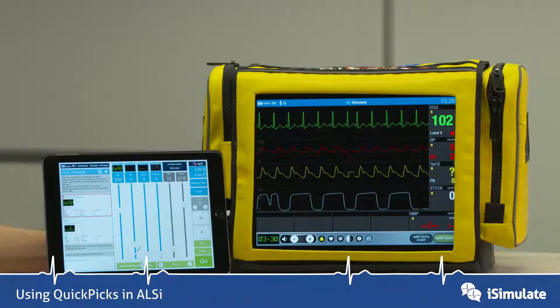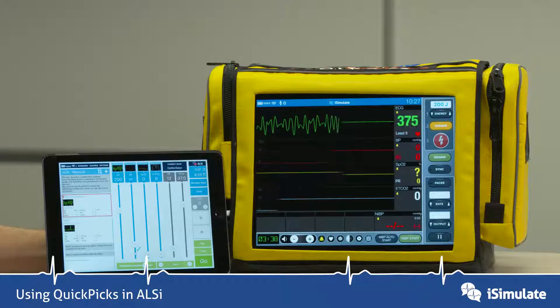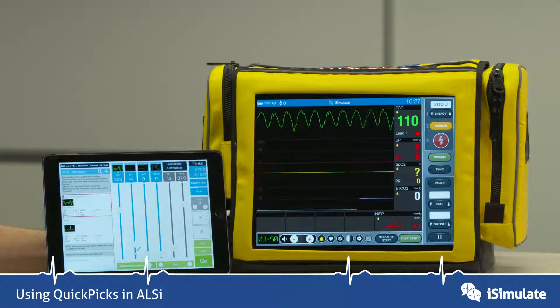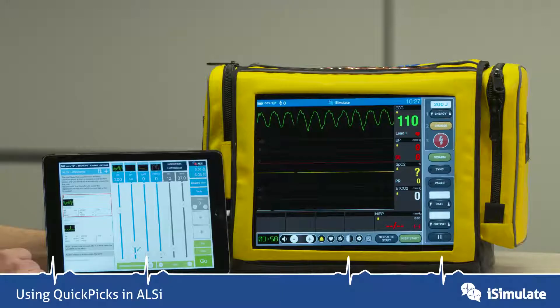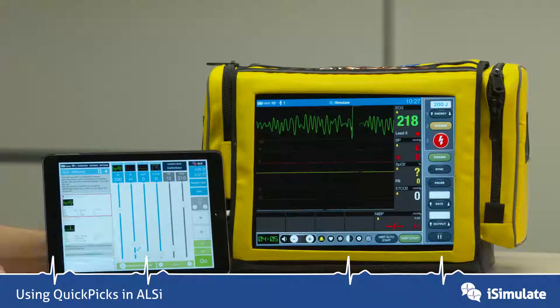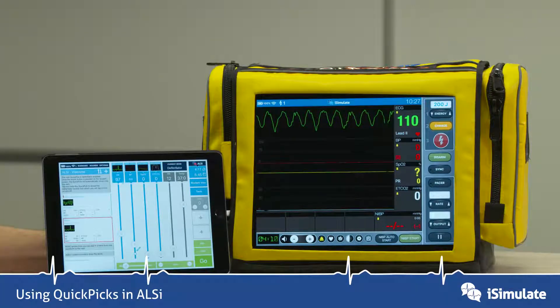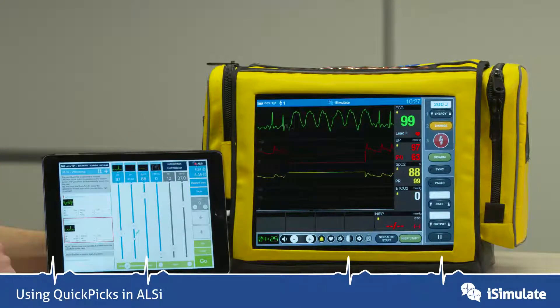The next one is a VF, so I'm going to change the monitor to a defibrillator. And now we can see we're in a VF rhythm. I'm going to add in CPR, so now we're hiding the rhythm underneath. While CPR is ongoing, we're going to charge. Now we have an active defib — I'm going to stop CPR. And as you can see, it's still a shockable rhythm, so we're going to press the shock button. As I do that, it's noticed that and jumped to the next box. I'll press CPR again to hide that. So that lightning bolt icon is a defib-enabled icon that allows it to jump to the next box. When I press CPR again, you can see that we've now got a return of spontaneous circulation.